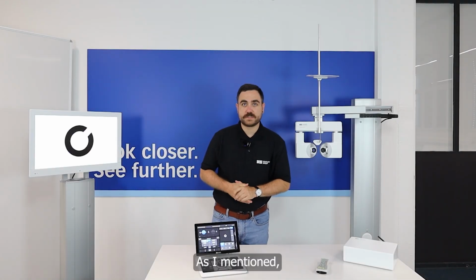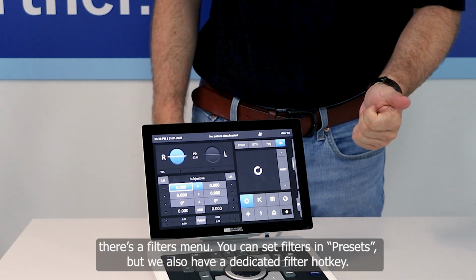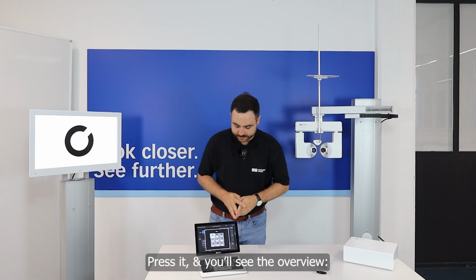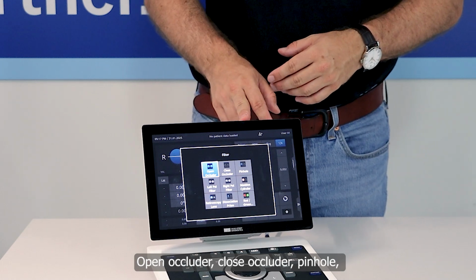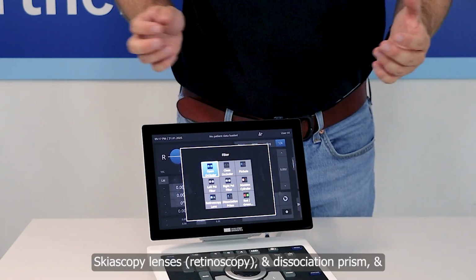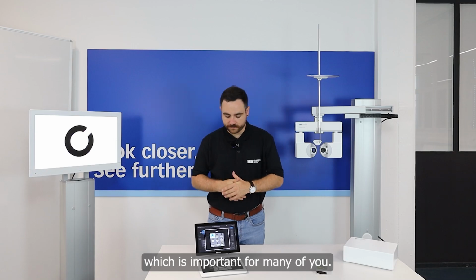As I already announced, we have a filter menu. You can set the filters into the presettings, but also we have here the hard key filter. Now I press on it and you see the whole overview above our filters. We have there open occluder, close occluder, a pinhole, left and right polarization, a Maddox cylinder is in it, and also retinoscopy lenses and dissociation prism. But last but not least, the red and green filter, which is also important for the most of you.